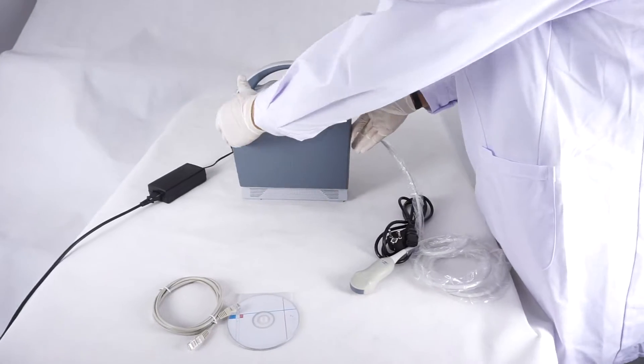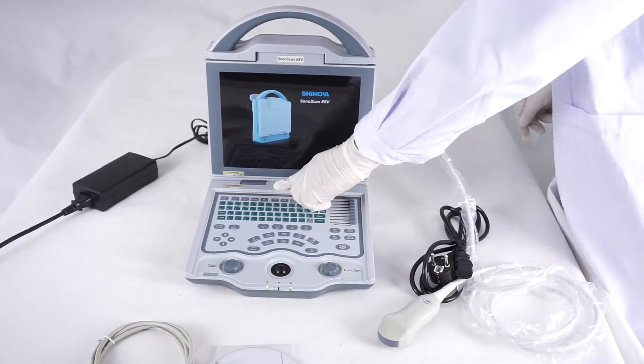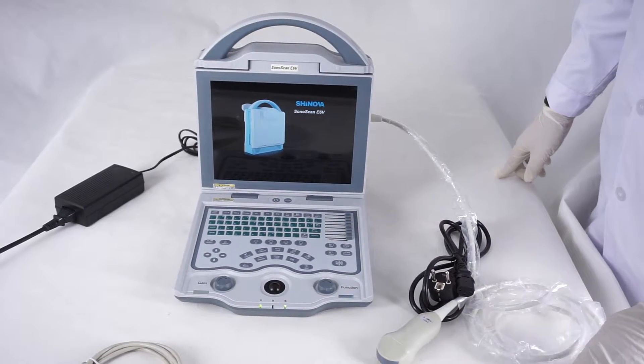This probe is mainly for small animals, for cardiac or pregnancy.